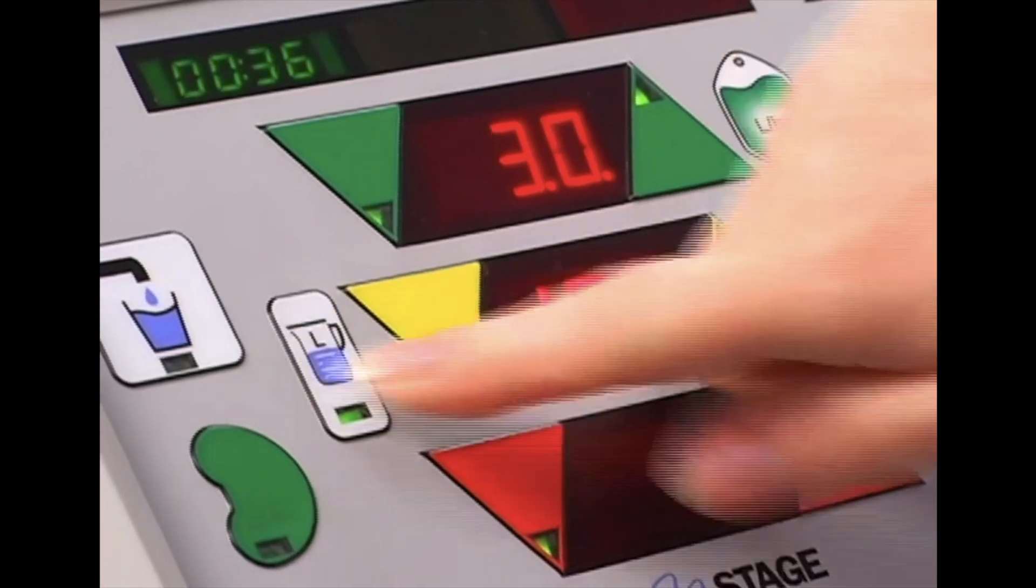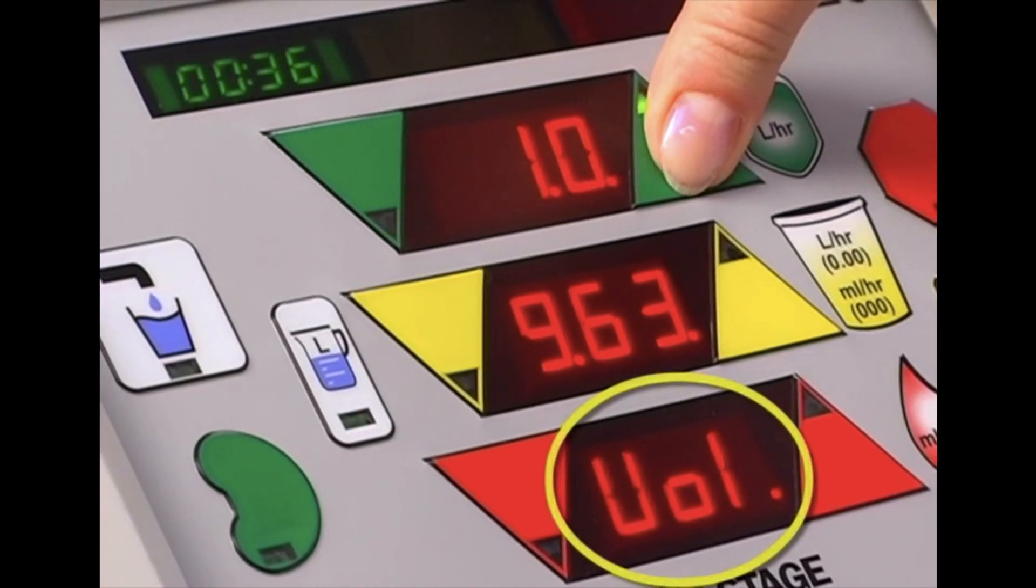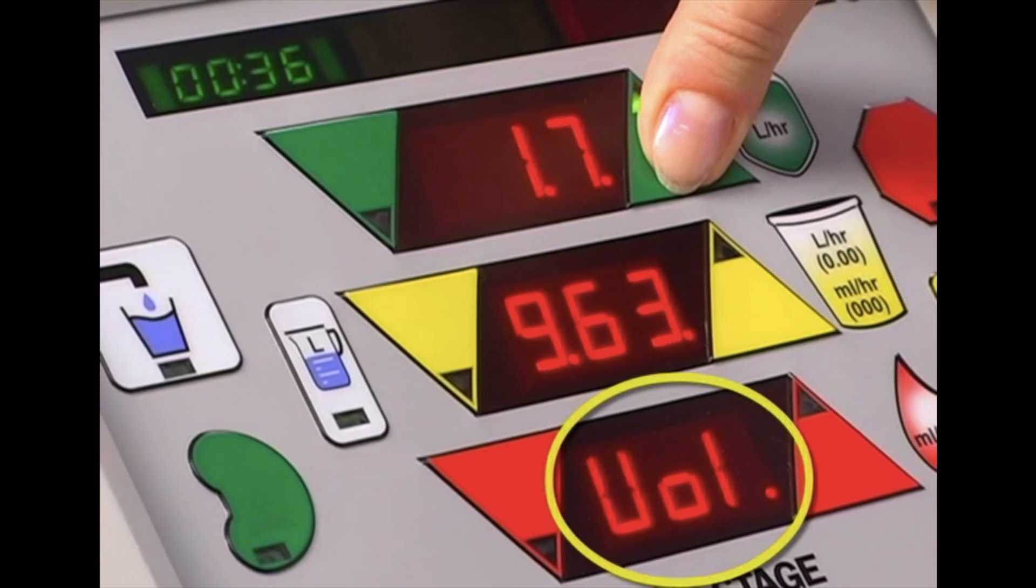Press the volume toggle. Make sure you see VOL in the red window and enter the total volume hung minus 1 liter.